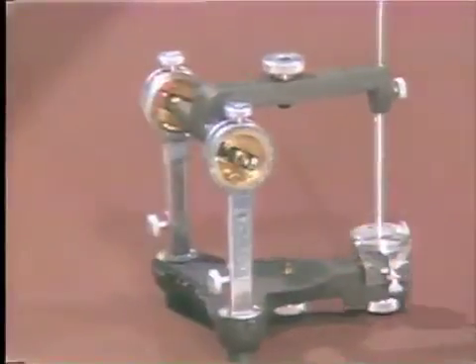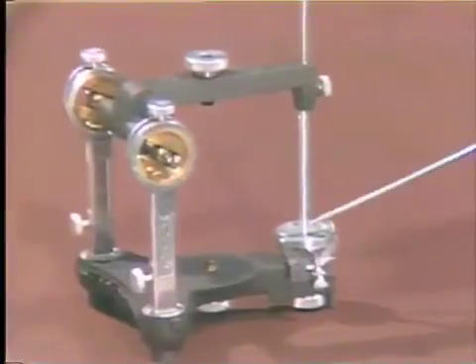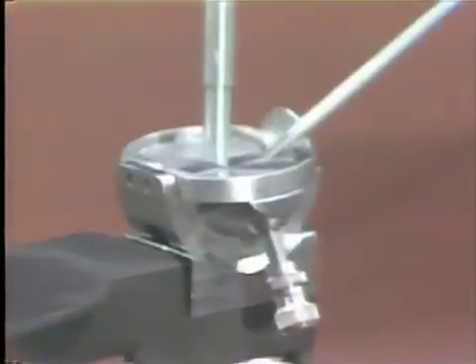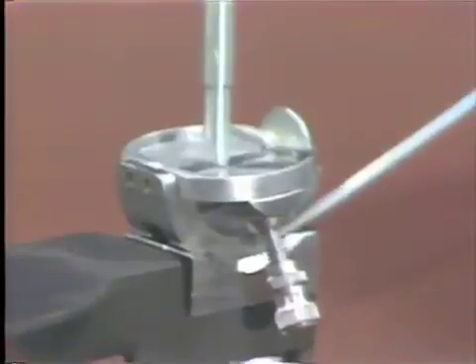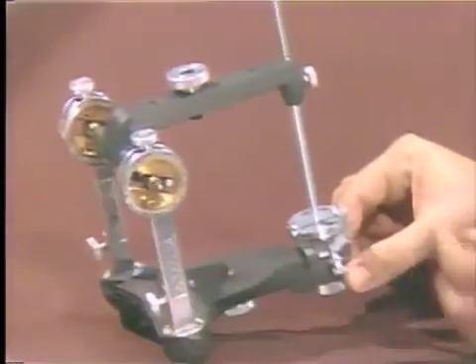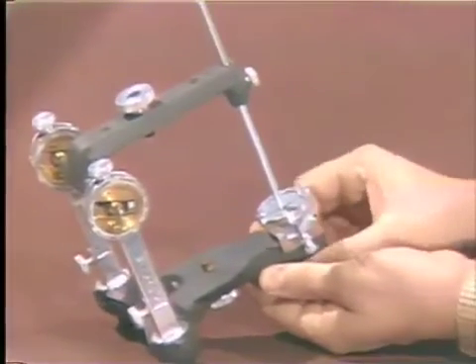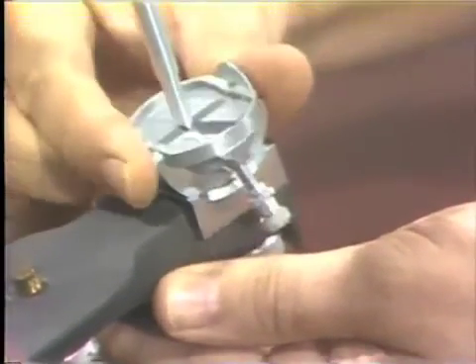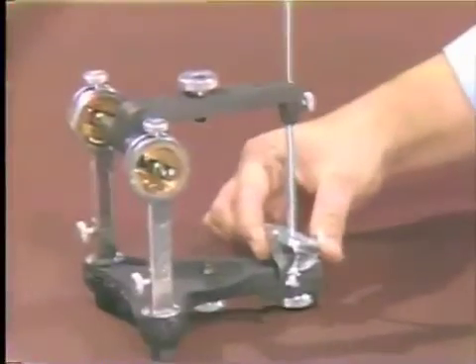In the front part of the articulator, we have this table and this pin. This is called the incisal pin and this table is called the incisal table. It allows us to set and establish, by this mechanical equivalent, the incisal guide table angle. By tipping the articulator slightly and loosening this bolt on the bottom of the instrument, one can rotate this table in an anterior and posterior direction, allowing you to set the mechanical equivalent for the incisal angle.